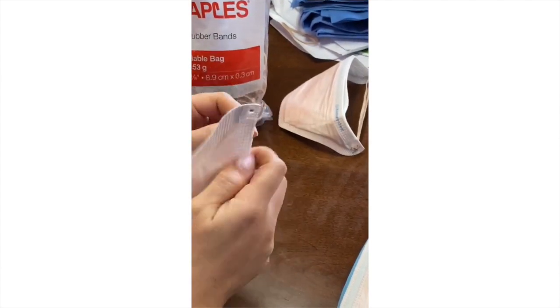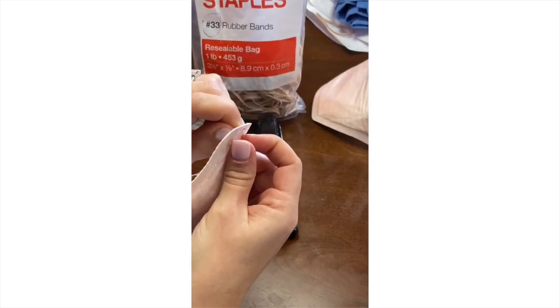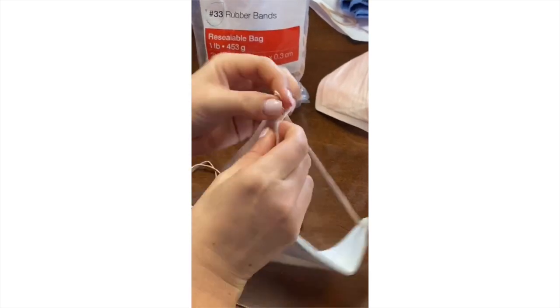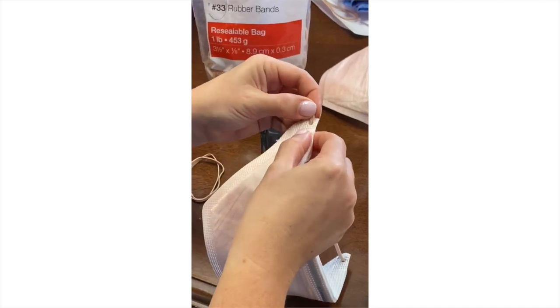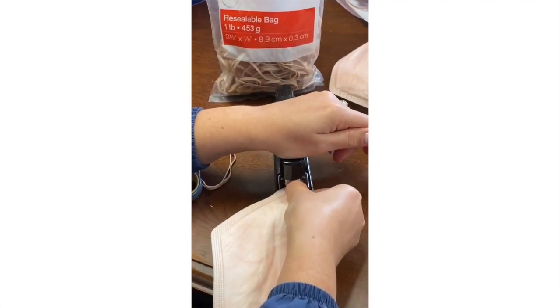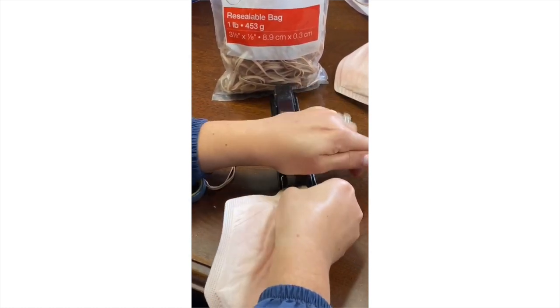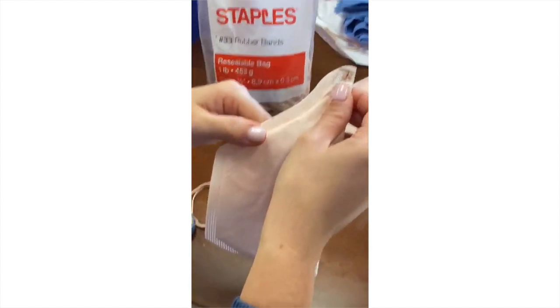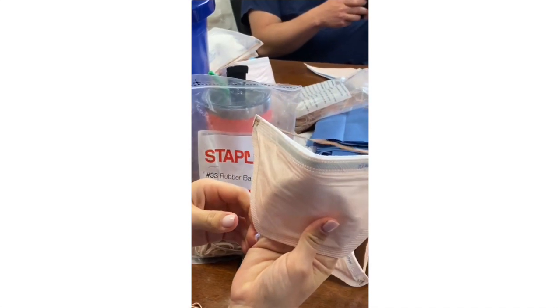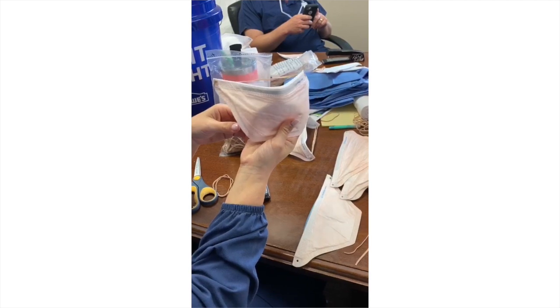Pulling both ends through the back side, leaving a small tail, stapling one time, flipping the tail over itself and stapling again. Now you have a secured N95 mask with new straps to take care of your COVID-19 patient or any patient that needs an airway manipulation. Good luck and stay safe.